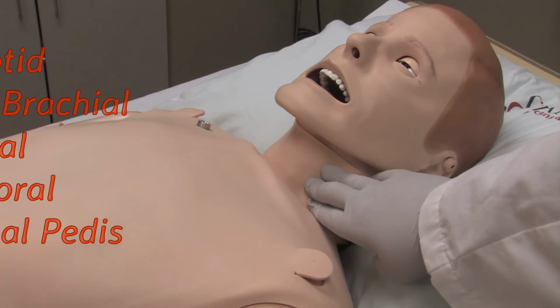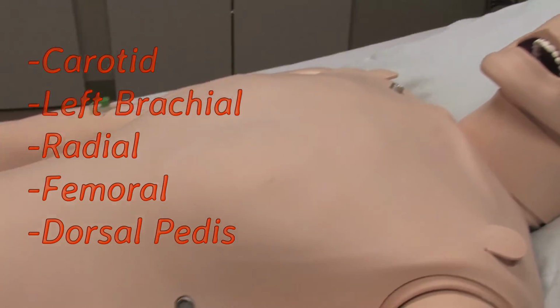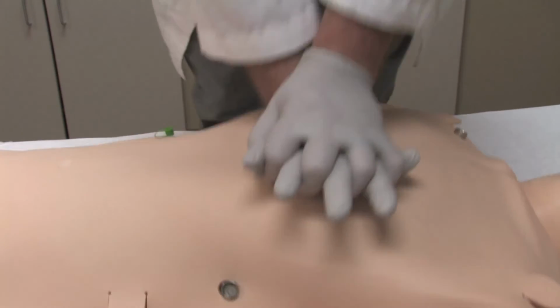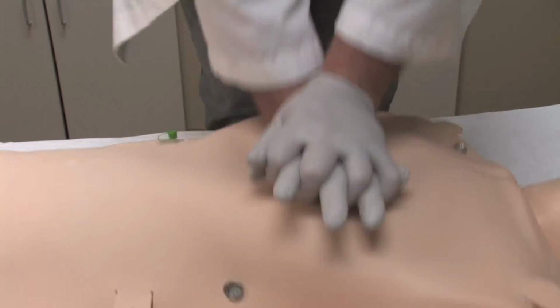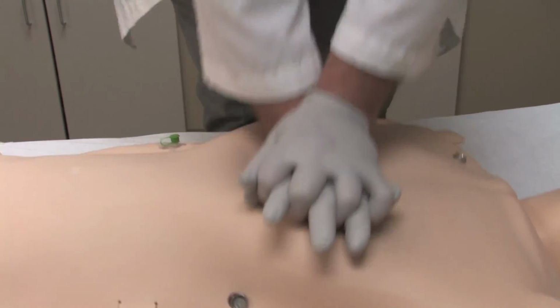When assessing the simulator's perfusion, you can check multiple pulse sites. Be sure not to press too hard while palpating the pulse, or you may mistakenly assume the patient has no pulse. If you recognize that your patient is missing a pulse and need to begin CPR, you may compress the simulator.